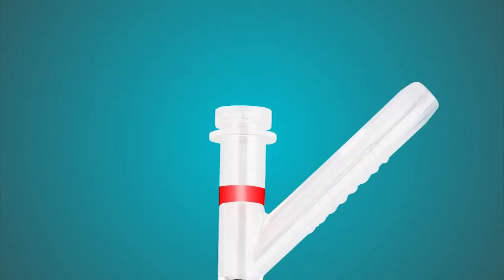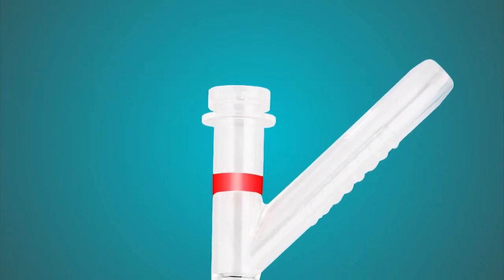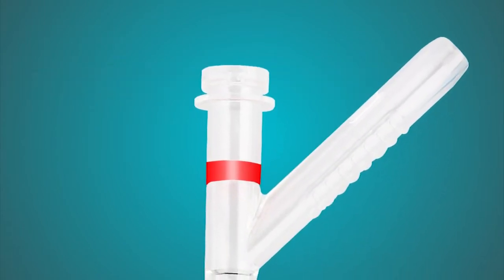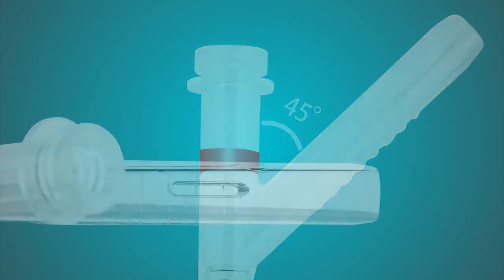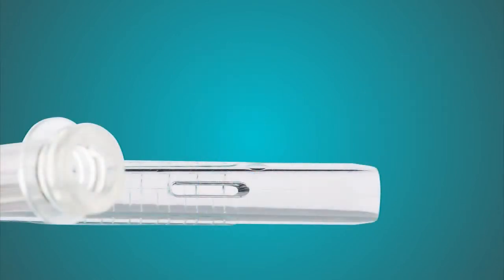A red band at the proximal end marks the limit of the endoscope withdrawal. The straight and oblique tubes form a 45-degree angle. The oblique sluice allows unimpeded egress of the stone fragments. The negative aspiration pressure can be adjusted using the pressure vent on the oblique branch.